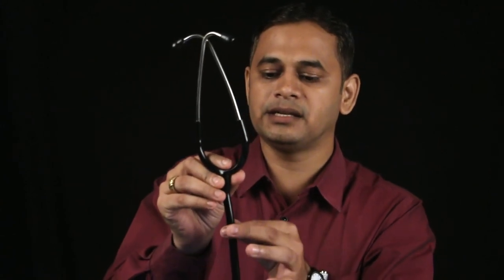While teaching students, there are many challenges regarding auscultation. For that, we have a third variety: the teaching stethoscope. It is similar to the standard stethoscope but has a second unit attached, so that at the same time, the professor can keep one set in the ear and the student can keep the other. With the same diaphragm on the chest wall, both the professor and student hear the sound simultaneously, enhancing teaching.